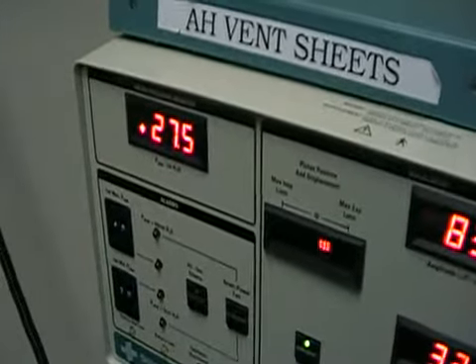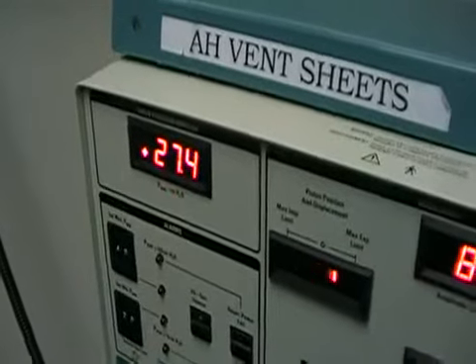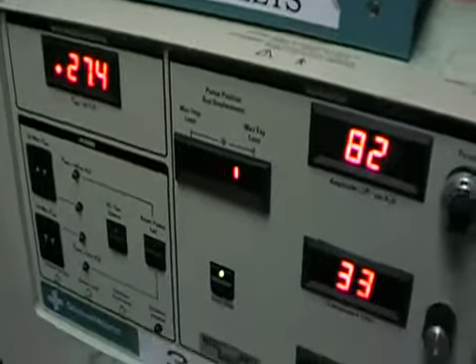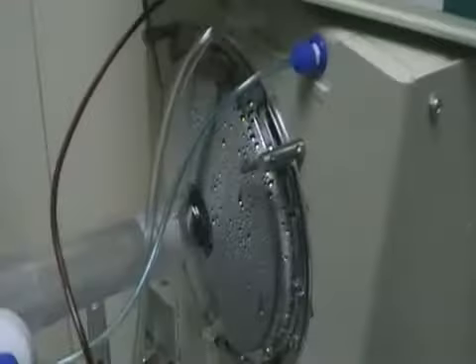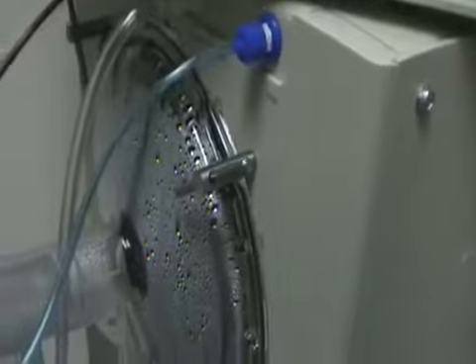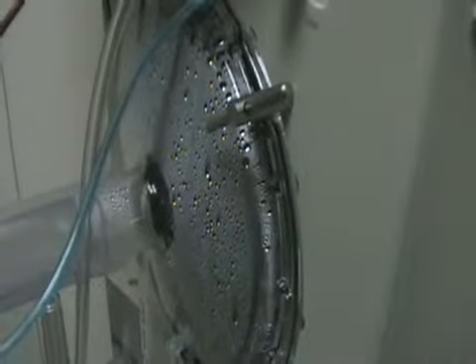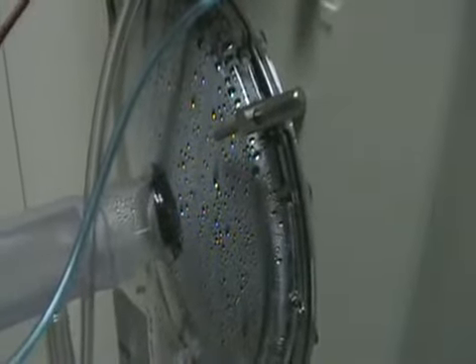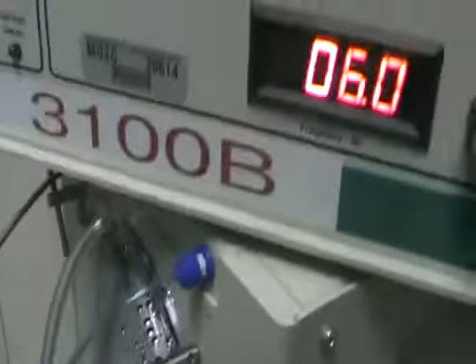So we've got the lung inflated. Now what we have to do is ventilate them a little bit, and we do that by moving the piston. The whole circuit and the patient's lungs are pressurized, and then we move this piston that's in here back and forth — it's active exhalation, it pushes the pressurized air and then pulls the pressurized air out. That creates the ventilation.